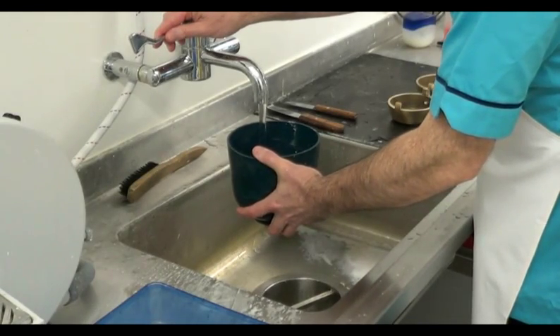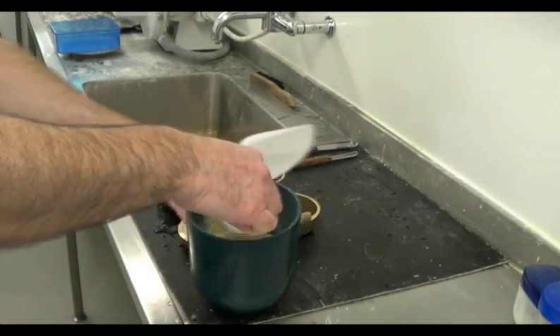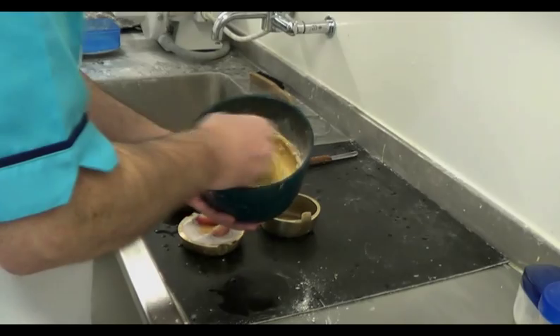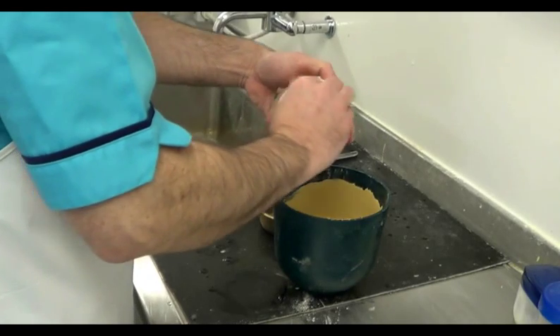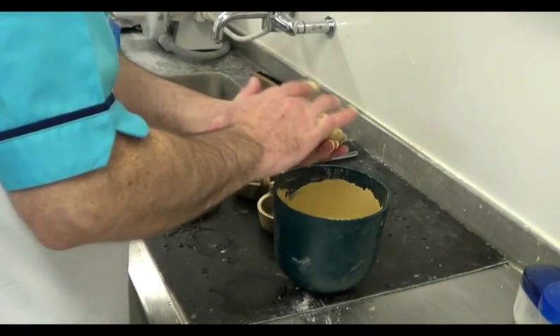Next, we must prepare a smooth mix of gypsum in the form of stone. This will provide a stronger, denser medium, which will be capable of withstanding the physical pressure of the packing process later on. Taking a small quantity of the material, we must work it into the wax surfaces around the artificial teeth in order to expel any excess air.